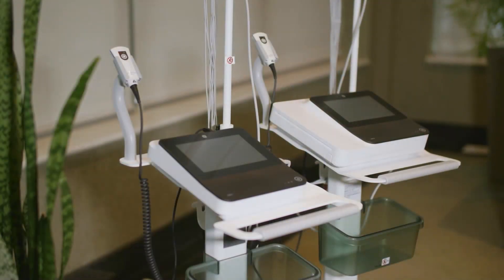It allows users of all experience levels to acquire high-quality ECGs with just a few touches of the screen. The MAC-5 was designed to provide the same user experience and clinical excellence as our other MAC models, the MAC-7 and MAC-View 360, in a more cost-conscious and compact design.